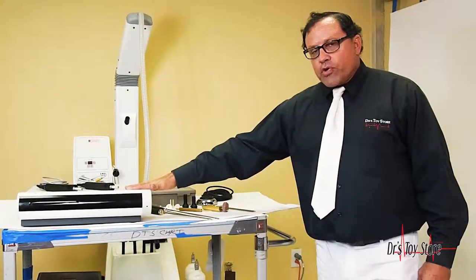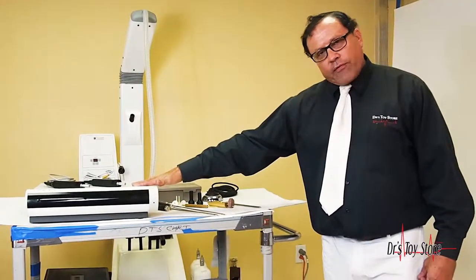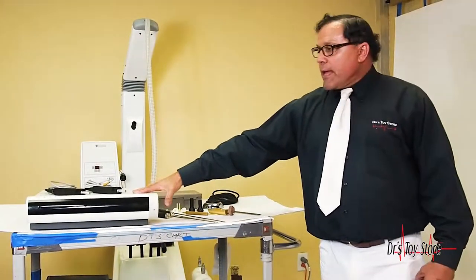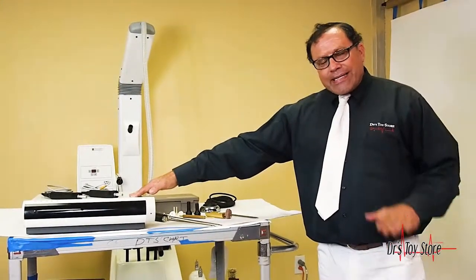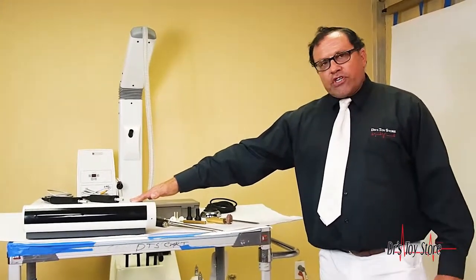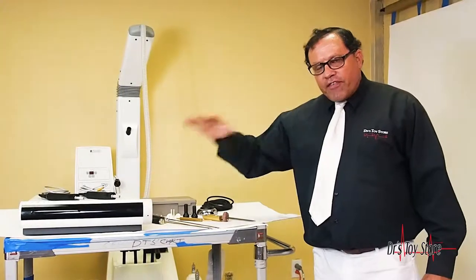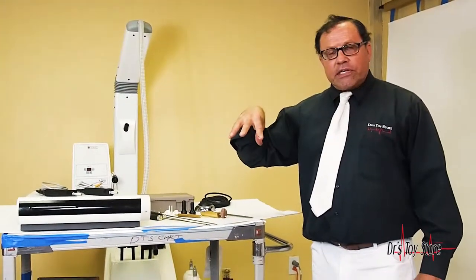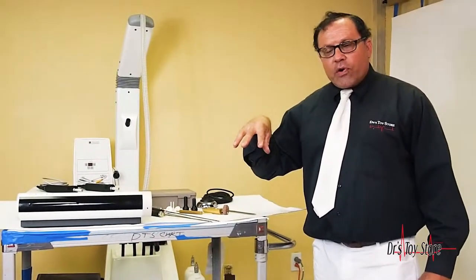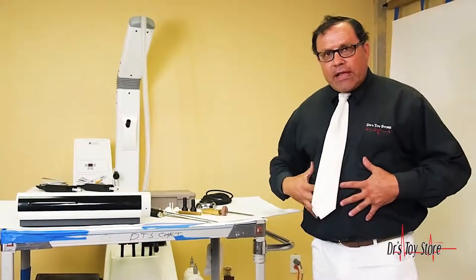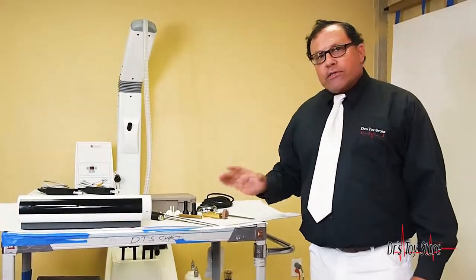We're here at the Doctor's Toy Store, and we're in South Florida between Fort Lauderdale and Miami Airport. This is great for liposuction. Essentially what it does is it shakes the grapes off the vines, and it leaves the vascular system intact. So you don't have a lot of elasticity, you don't have a lot of movement. The Vaser is a great product.